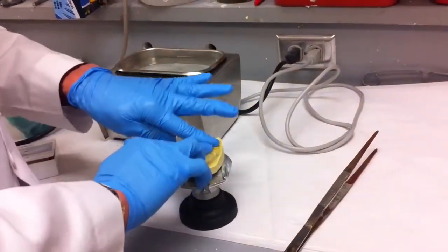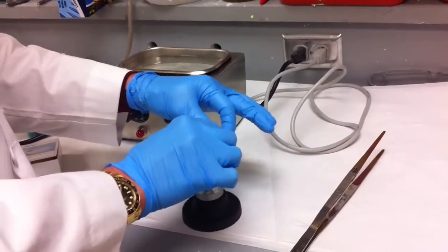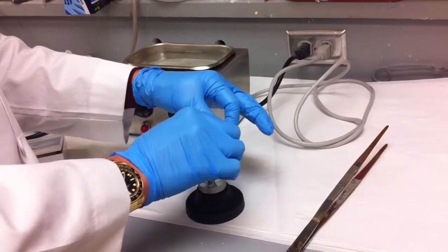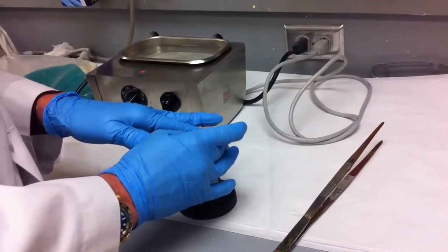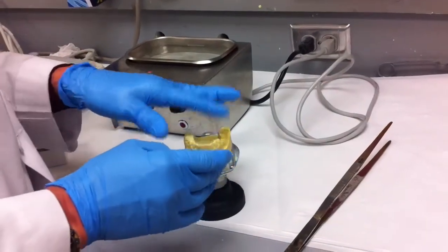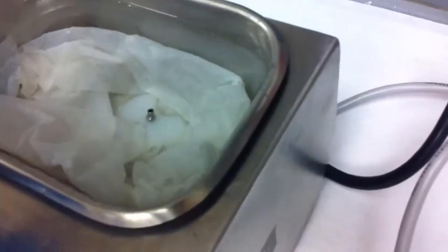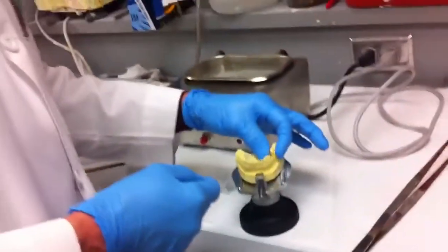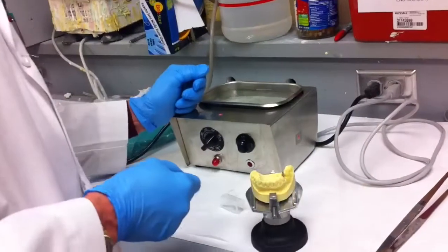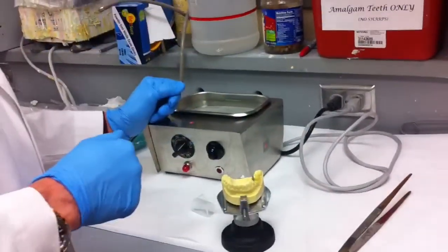You're just trying to smash it down on top of the occlusal surface, and maybe just a little bit of the occlusal third. So if it flanges out like that below that occlusal third, that's okay. And then as we let it set there, it will turn white again, and when it turns white it's ready to come off. Hopefully you haven't put it into any undercuts, and then you can just trim off the excess and you're ready to go.